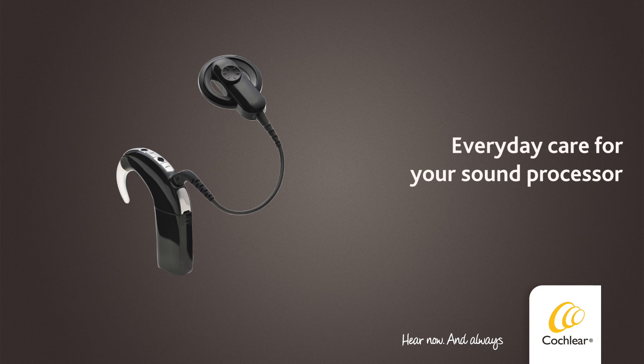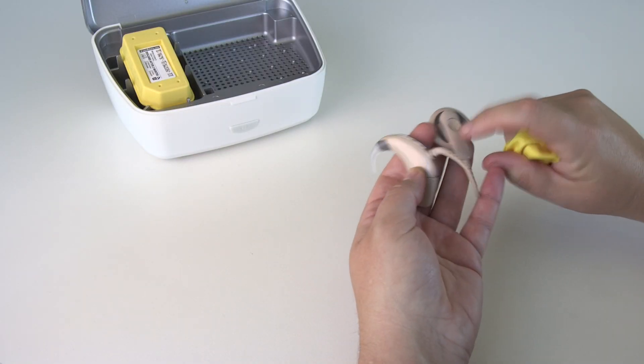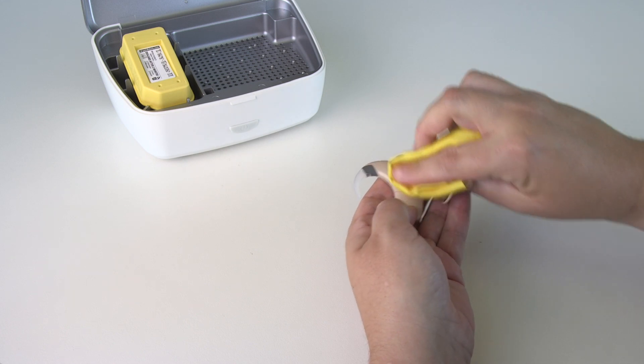Everyday care for your sound processor. Every day you should check all parts of your processor for dirt and moisture.